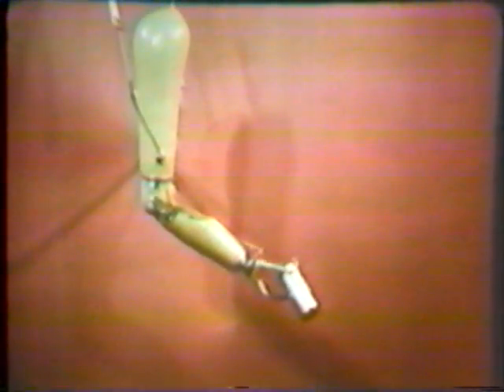It is impractical for the amputee to attempt to lift any significant amount of weight in the terminal device of an above-elbow prosthesis controlled by a two-cable system. To understand why, the viewer must realize that as tension is placed on the cable in an effort to flex the elbow joint, the force is first transmitted to the terminal device and tends to cause the hook to open, releasing the object.